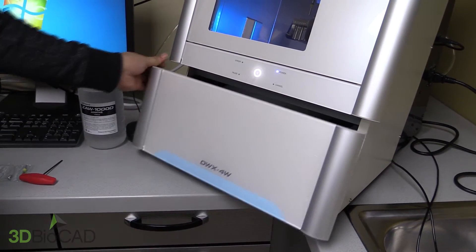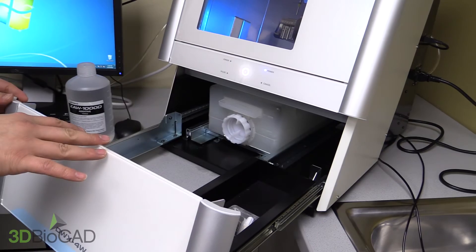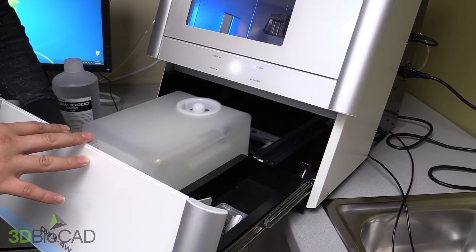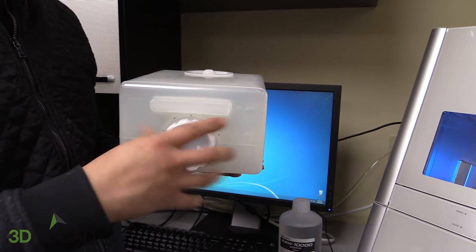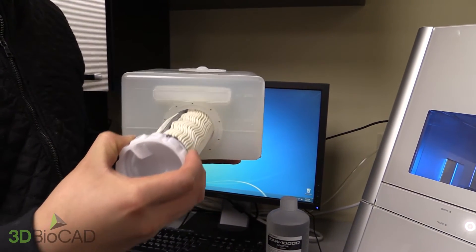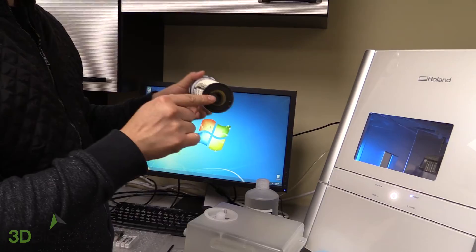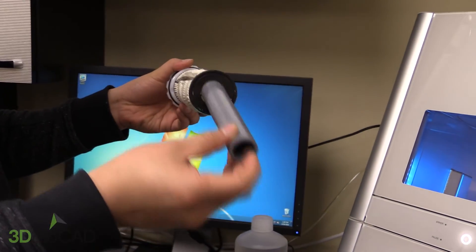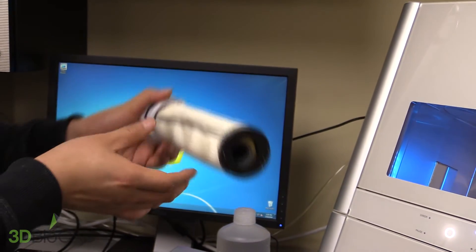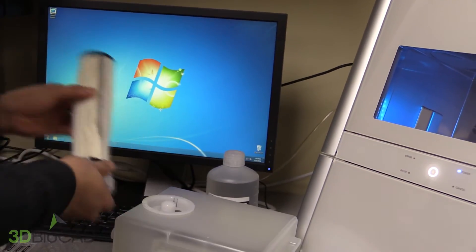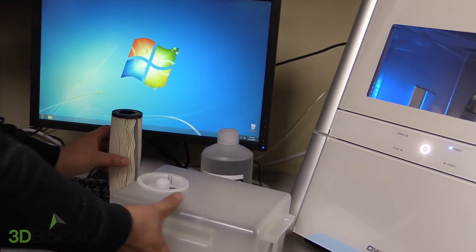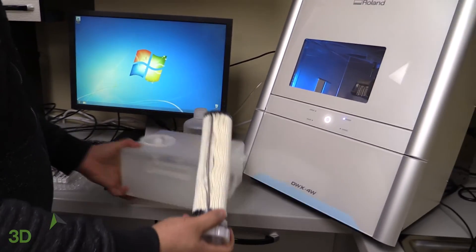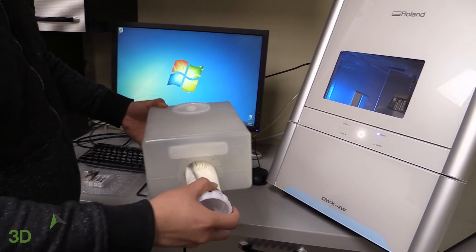Now you would need to fill up the coolant tank. Inside the coolant tank you will see the filter on the side. Remove the filter just to ensure that everything is okay. Inside the filter you will see a plastic tube which is to be used to support the filter when it's wet. That plastic tube should be held on to, just in case you need to replace the filter.